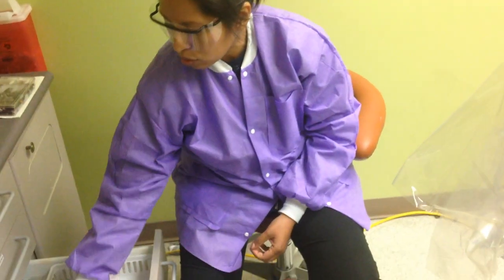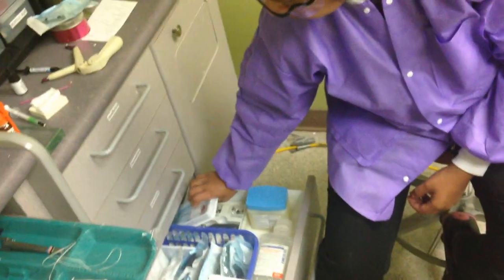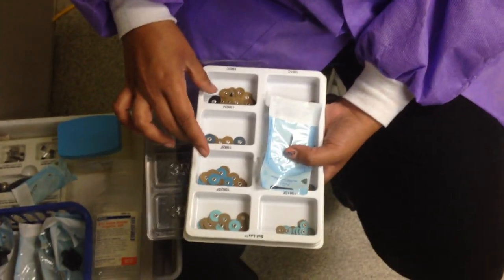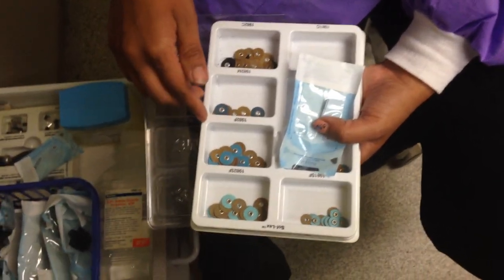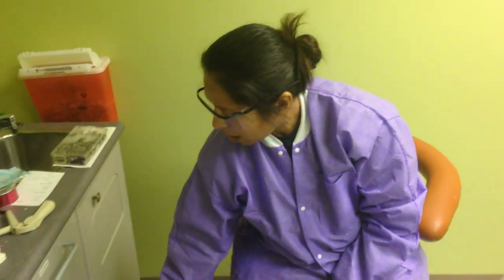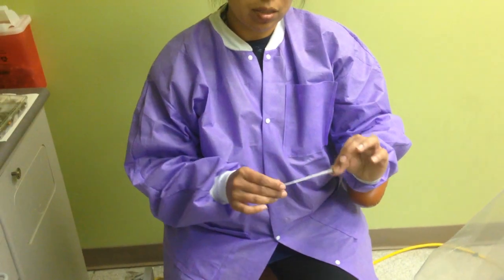For anterior teeth with facial cavities, she likes to polish with the mandrel disc, located in miscellaneous. You've got your mandrel holder and different grits of wheels, starting from strong to fine grit — take out one of each. This is only for anterior, from canine to canine. If it's an interproximal cavity, she'll use her little finishing strips to smooth out the interproximal area — in between the teeth — if the filling falls in between.